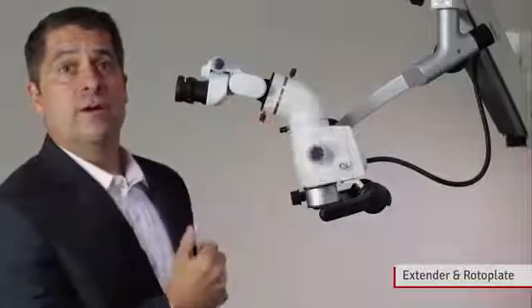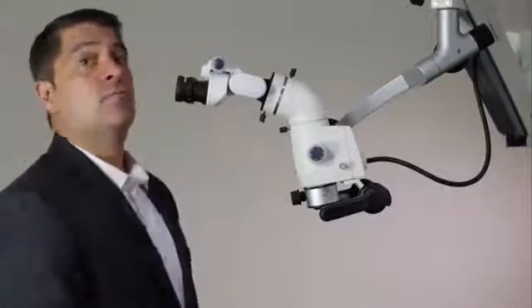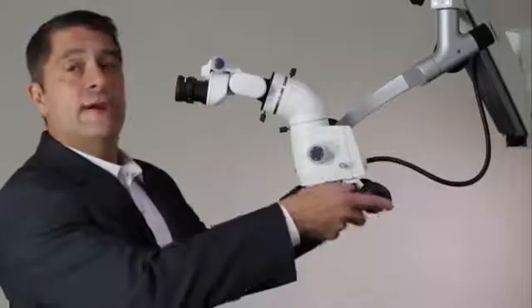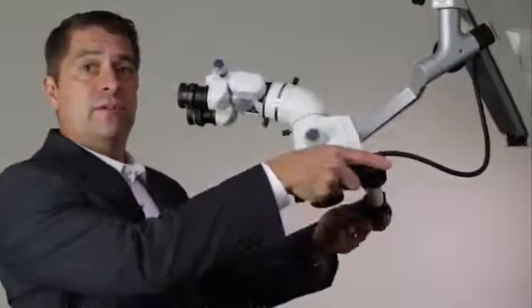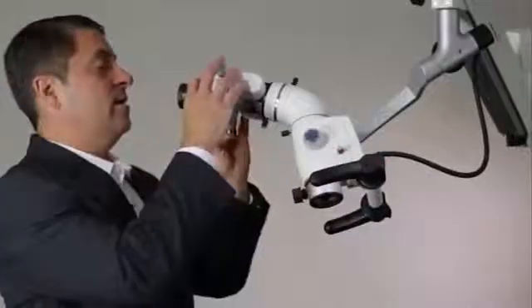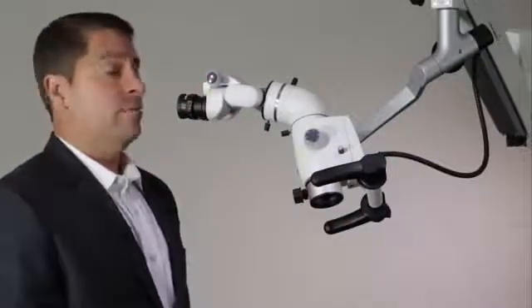Our 45 degree extender provides a more comfortable viewing posture by bringing the viewing head closer to the viewer. The rotoplate accessory allows you to tilt the microscope up to 30 degrees in either direction while keeping the eyepieces aligned to the user, creating a more comfortable viewing posture.